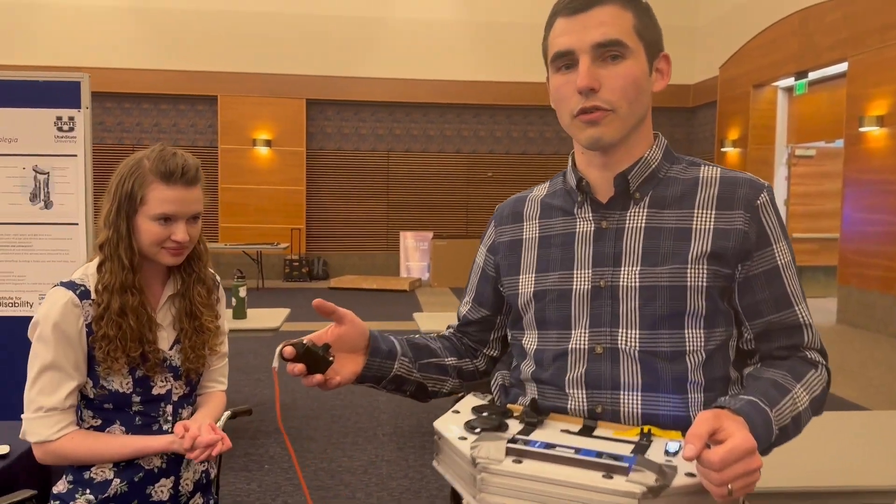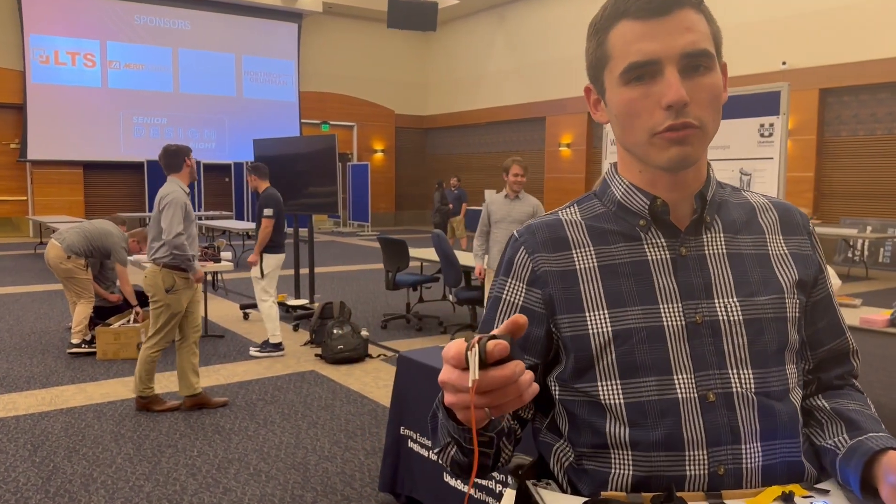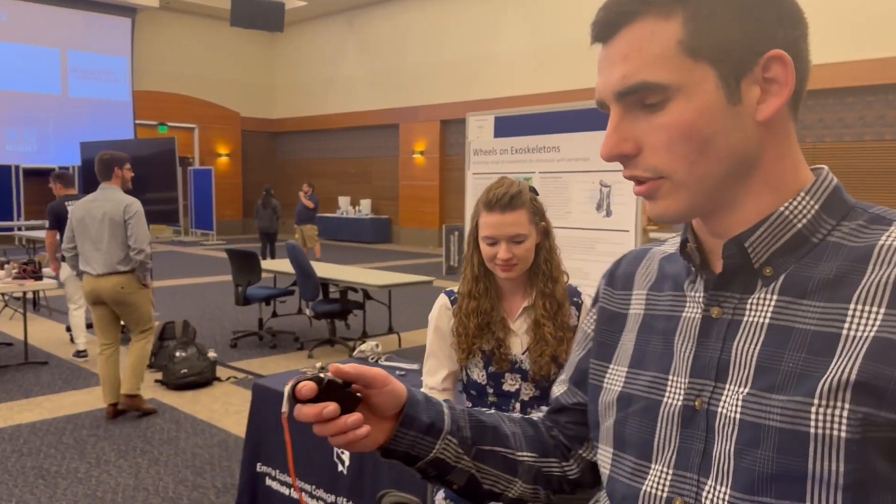Leaning forward, I lean forward; I lean back just like the Segway does. I turn here to do the turning, which this would be the knee bar of the Segway. Ideally a future version of this would have everything into a joystick.